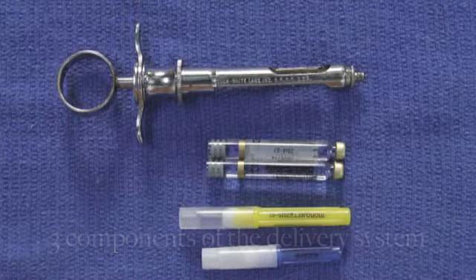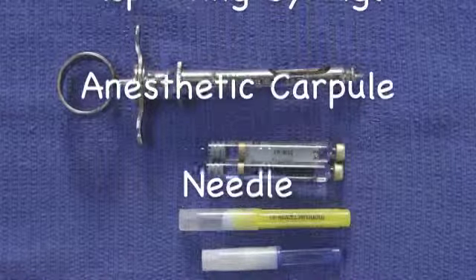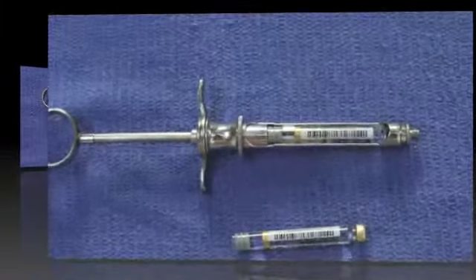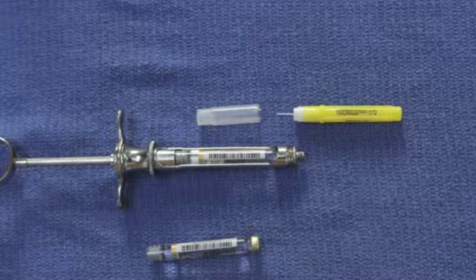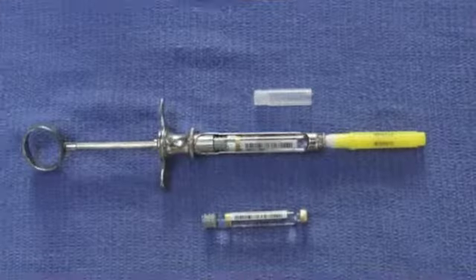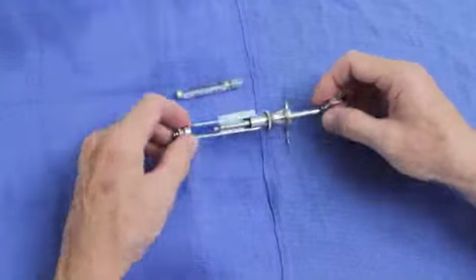In these photographs, you can see that there are three parts: the aspirating syringe, the anesthetic carpule, and the needle. All of these are necessary in order to provide local anesthesia. Here's the syringe with the carpule. Here's the syringe with the carpule and the needle about to be placed. And here's a fully assembled local anesthetic aspirating syringe.